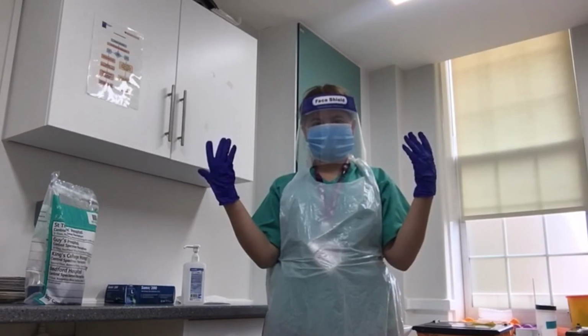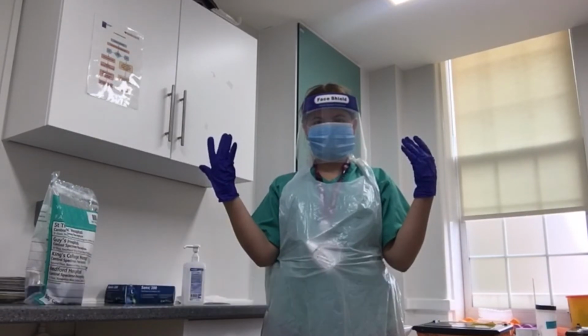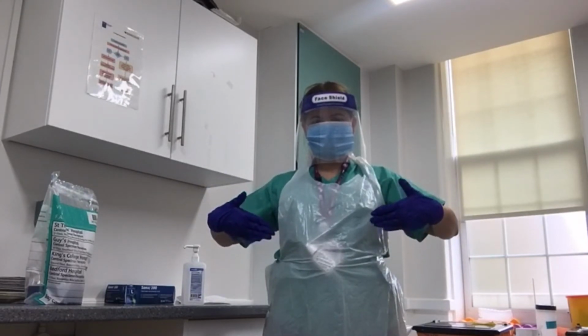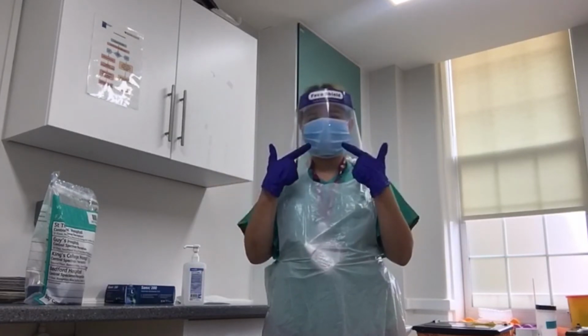Claudia is now going to demonstrate removal of PPE. It is important to remove PPE in the correct order. That order is first gloves, then apron, then eye protection, and then surgical mask.